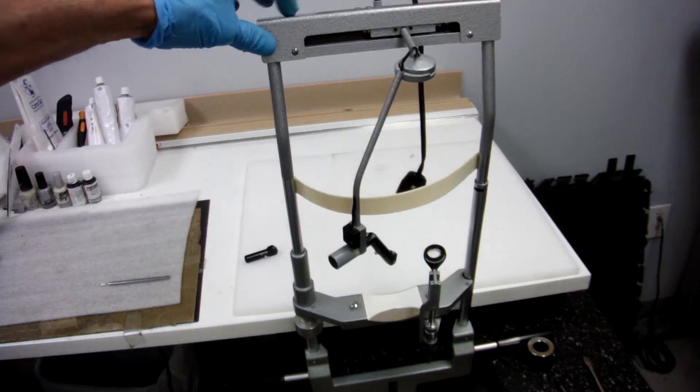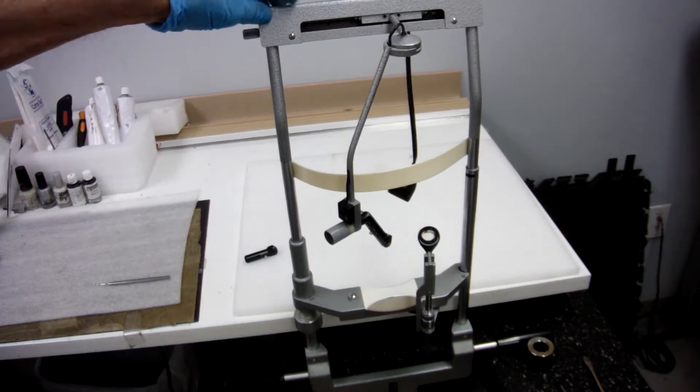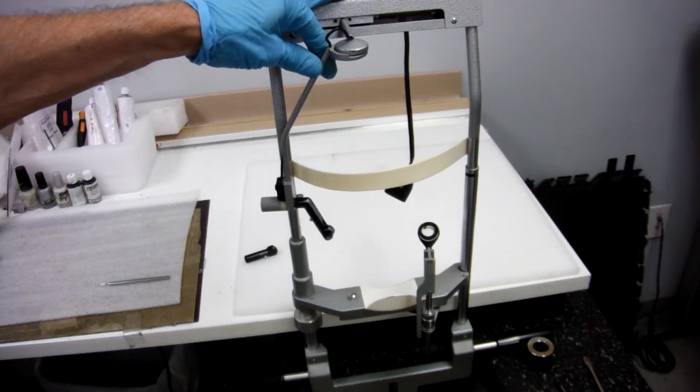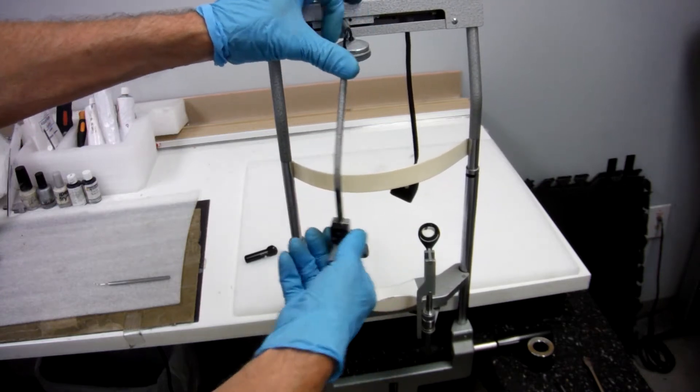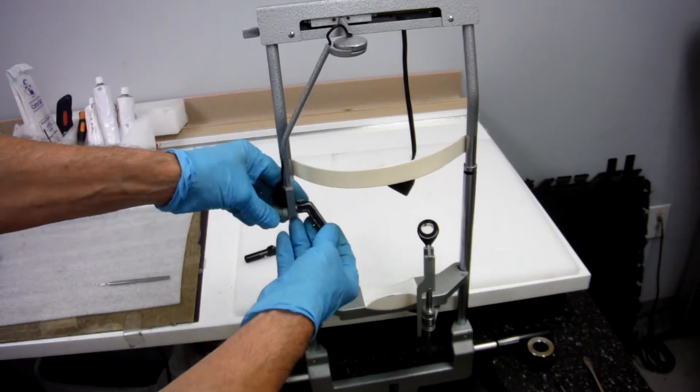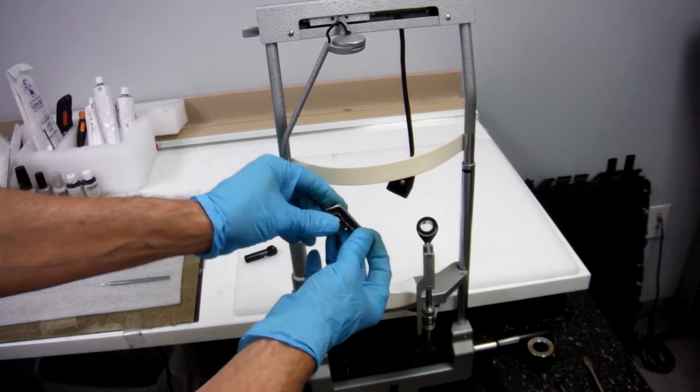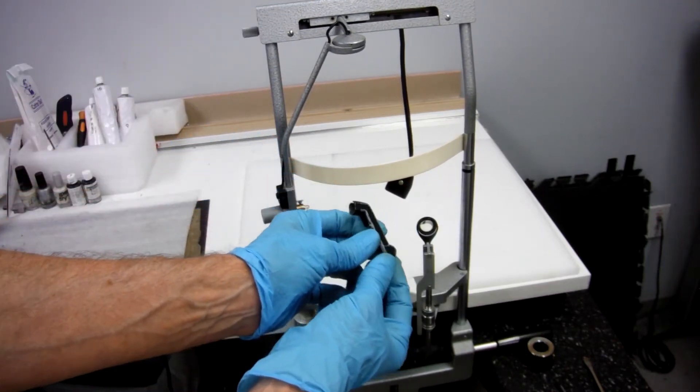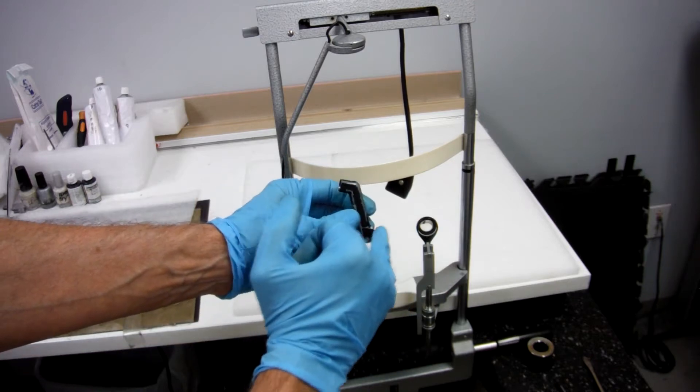On your old-style square top chin rests, you have a fixation arm that is different than others, and it requires a target that's in the shape of a Z.